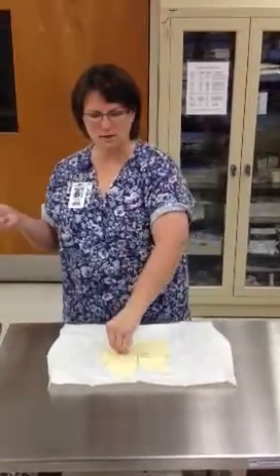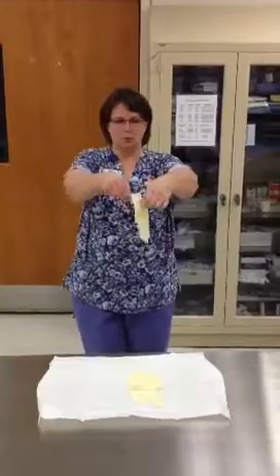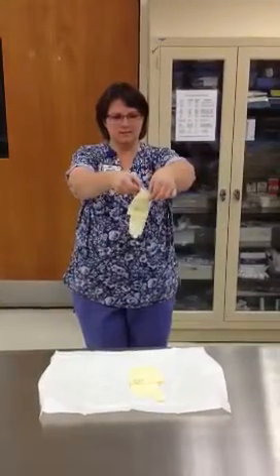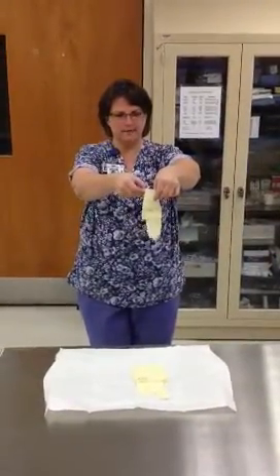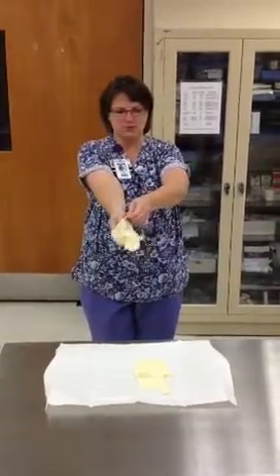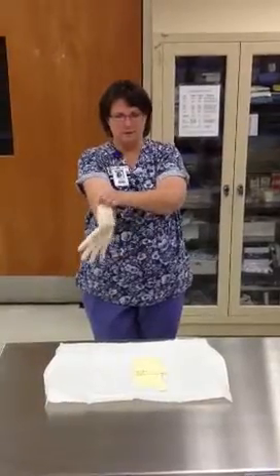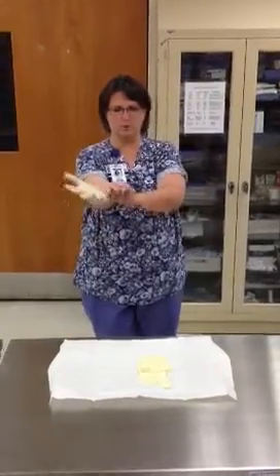Reach across, pick up the glove high enough, and step back. Reposition so your thumb is inside of the hand that picked up the glove. Palm side up, slide your fingers and your thumb in, find the glove fingers, and pull it over your wrist.